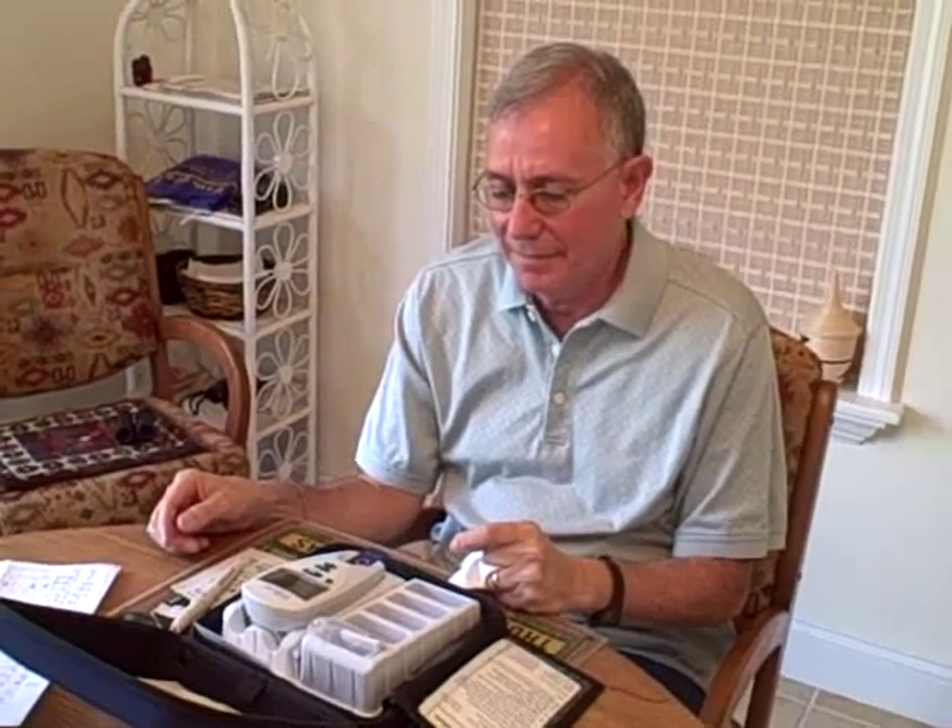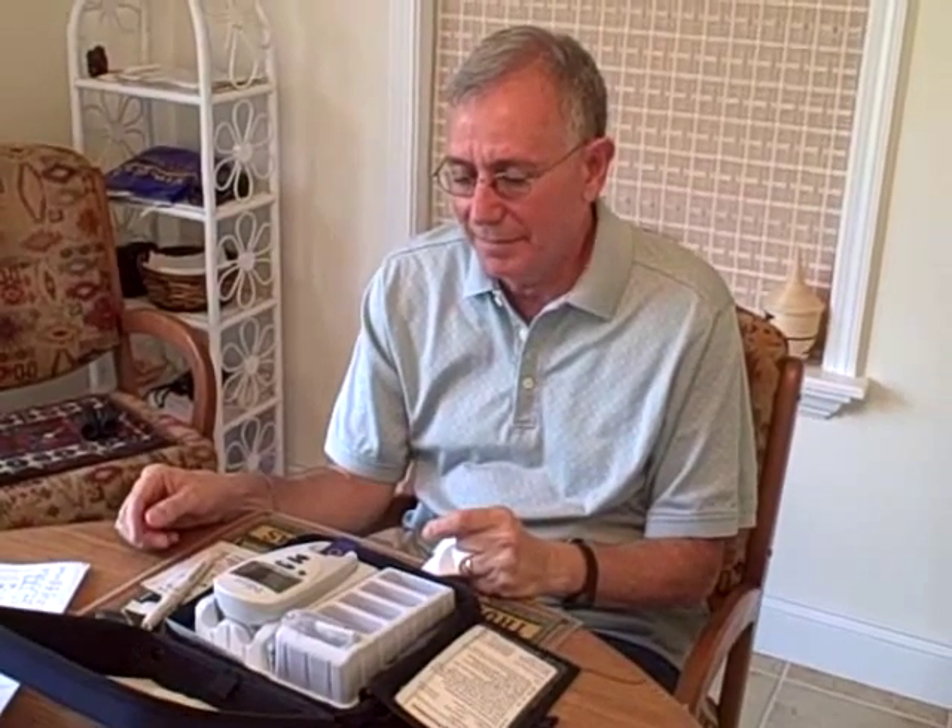So that means you really can put this whole thing in your carry-on bag and just go. We have been traveling the world and it's worked everywhere we've gone. It's made life really easy. And because he has to take this Coumadin to keep his blood thin, it takes the worry out of his mind that it's too high or too low.